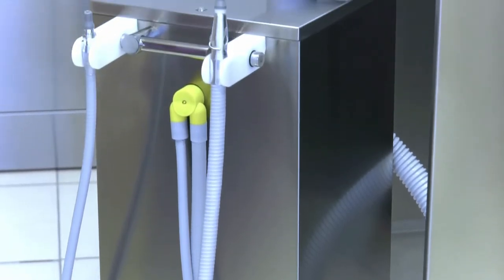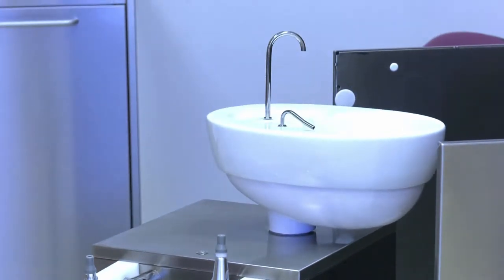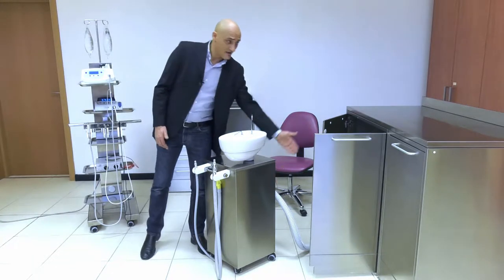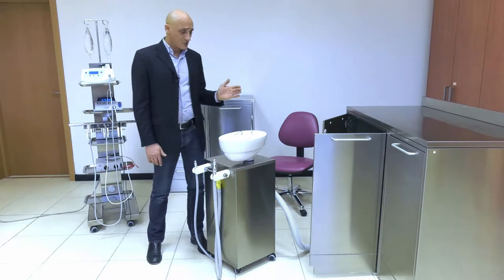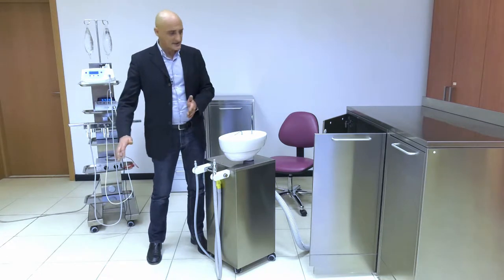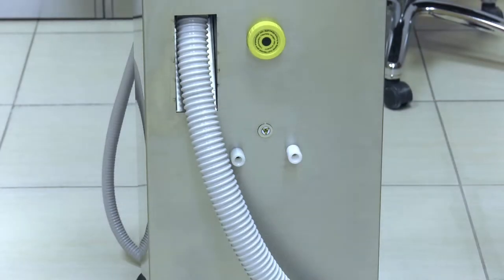Aspirol is our suction cart. As you can see, it is entirely made of stainless steel, fitted with 4 wheels to be carried around, and has a connection pipe for both water and power, starting at the top of the machine and connecting to the top part of the cabinet. This allows to prevent the pipe from laying on the ground, thus avoiding friction and, more importantly, excessive dirt.